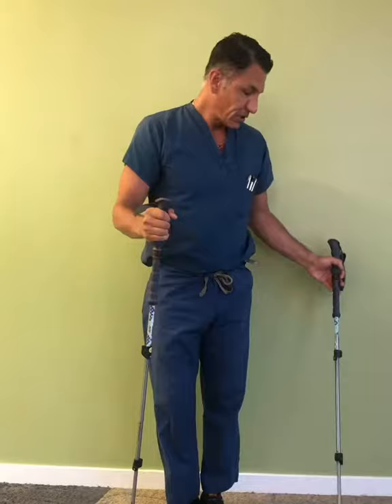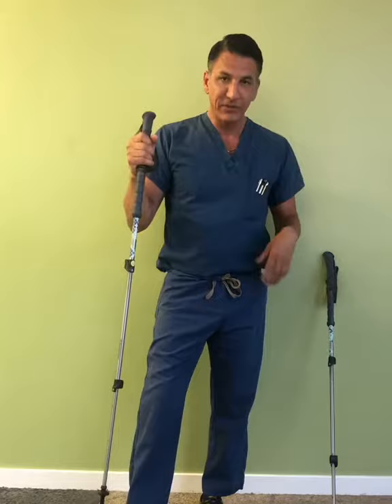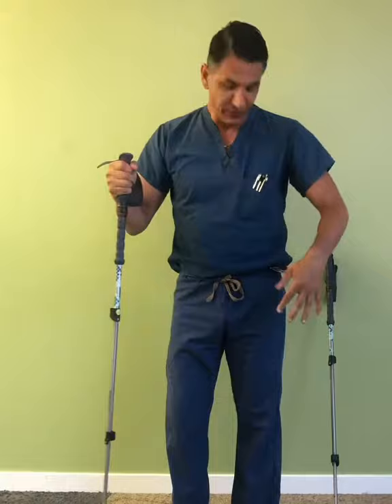So if you're going to travel and use a little help, one walking stick is fine. You use it on the opposite side of the pain. So if you have left hip pain, you use it on the right side.